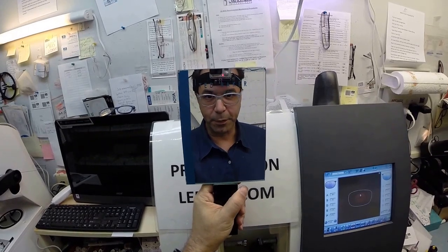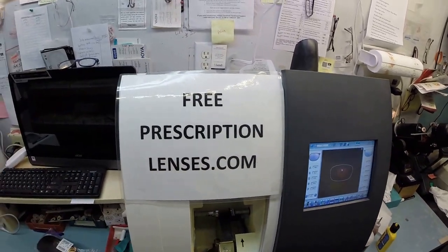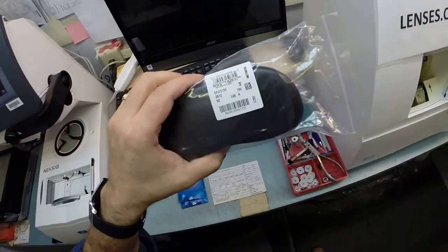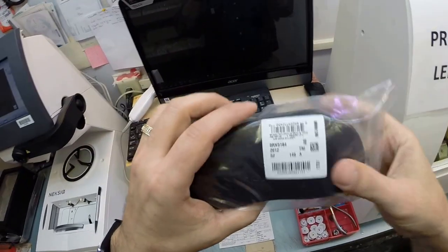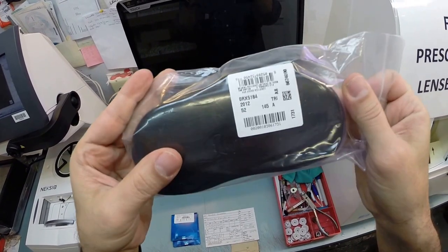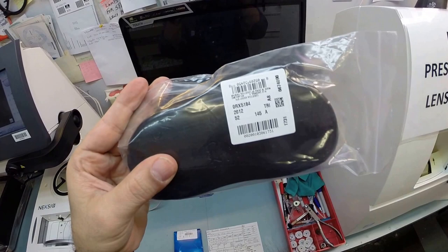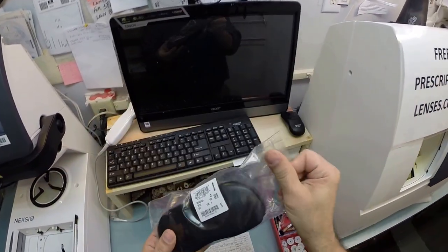Hey Randall in Orlando, Florida. Matthew here with FreePrescriptionLenses.com. With the help of my GoPro camera, I'm gonna show you how I cut prescription lenses with transitions for your Ray-Ban 5184 color 2012 in the 52 eye size.